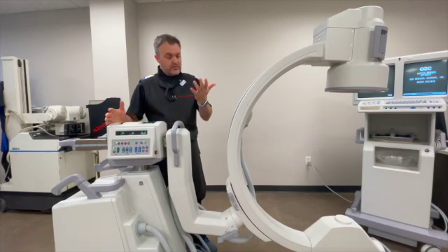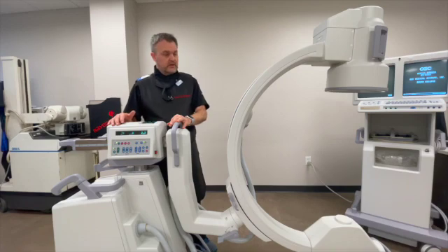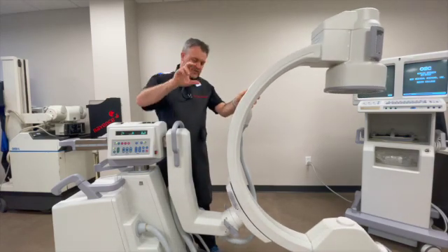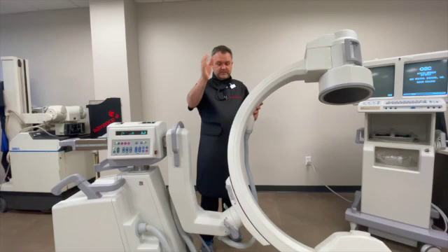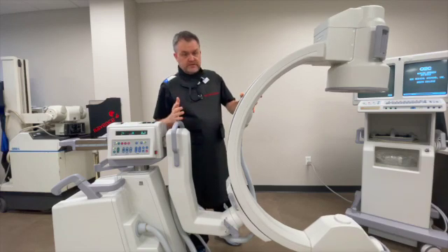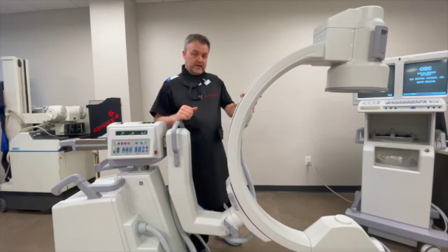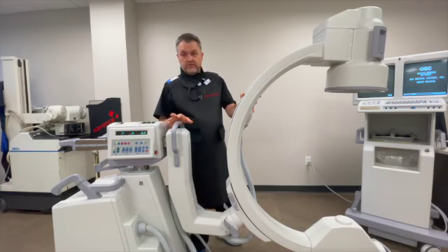With a little bit of practice, I personally find SmartView the most useful lock — it opens up a whole world of versatility for many of the cases I perform. Unlocking it gives the appearance of a tilt, but it's actually moving in three dimensions because the lock itself is slanted, tilting on an axis — not a straight 90-degree tilt. GE describes its function for lining up end plates on lateral lumbar spine or for helping line up perfect circles in IM nailing. I find it very valuable for acetabulum and pelvic cases, giving a much greater range of motion without having to move the base.